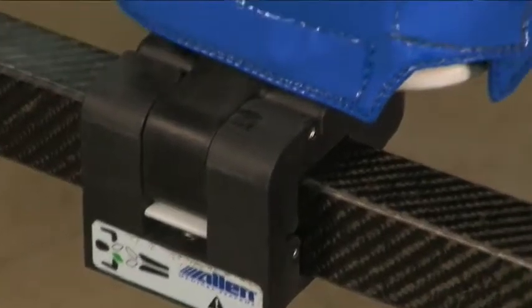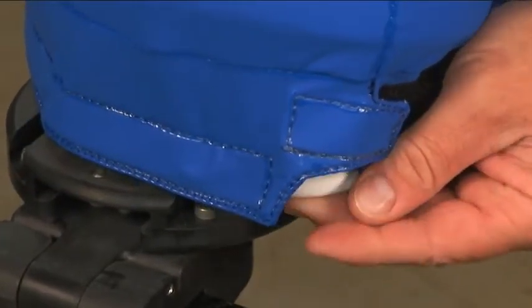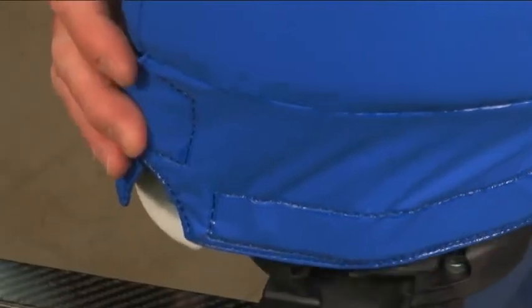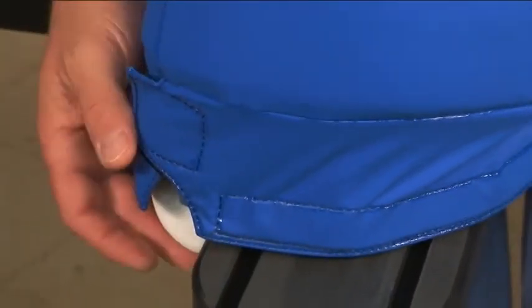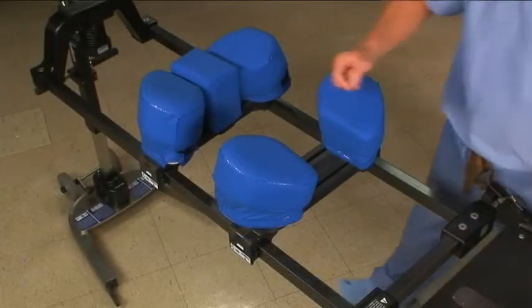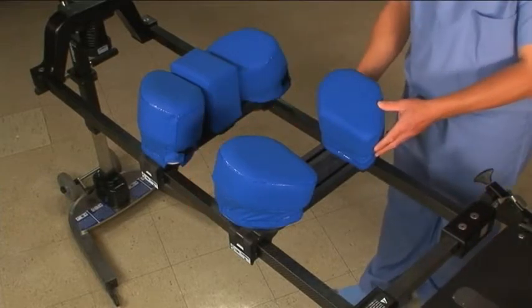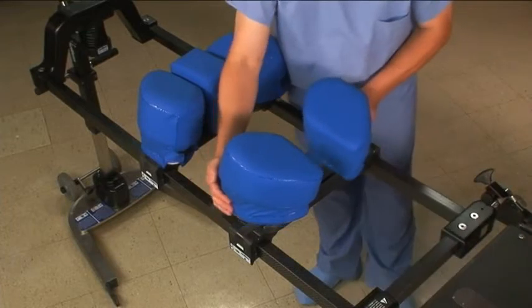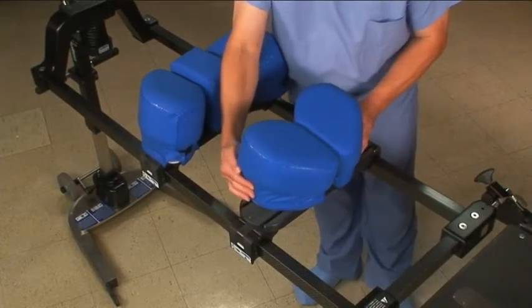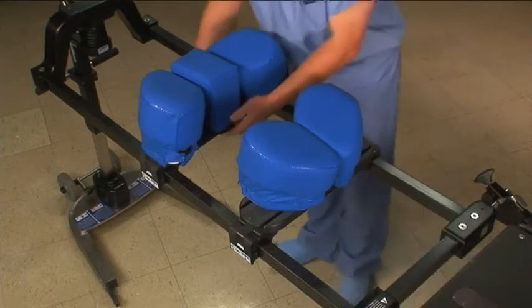The width of the pads is adjustable. Flip the white lever down to slide each pad in and out. Flip the lever back up to lock. The Wingset pads should be located to support the patient's bone structure. You can remove the chest block to avoid sternal compression. Removing the center pad also allows the width to be adjusted for pediatric patients and those with smaller frames.